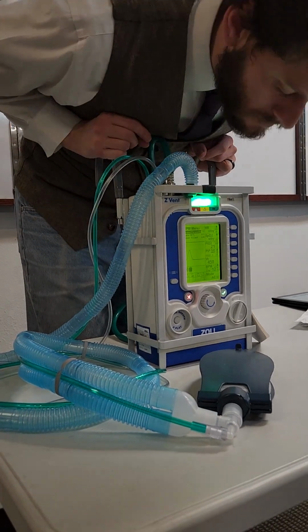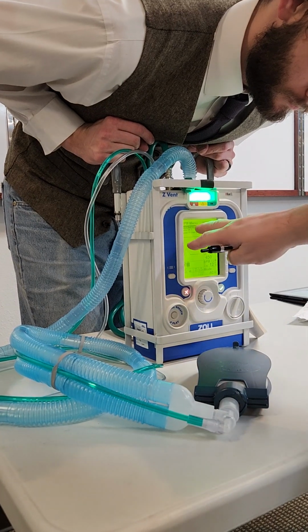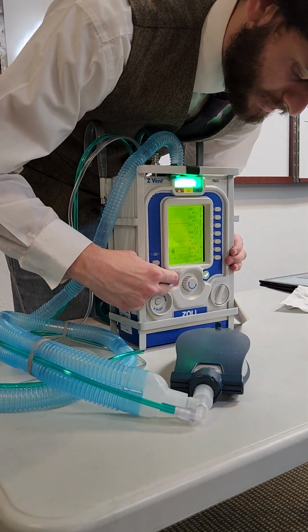All right, so if you're in a menu and you don't want to be in that menu anymore, how do you make this go away, or does it go away over time? Or is there a clear button? Oh, hit the clear X. Okay. Hit the X, get rid of it.